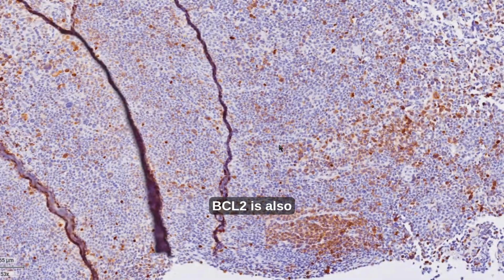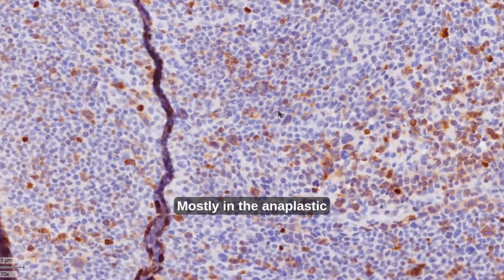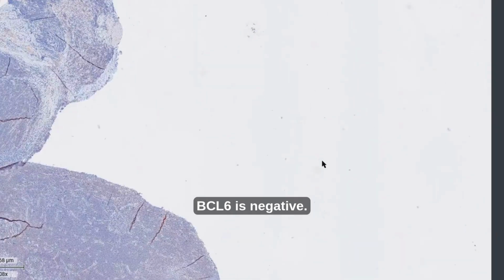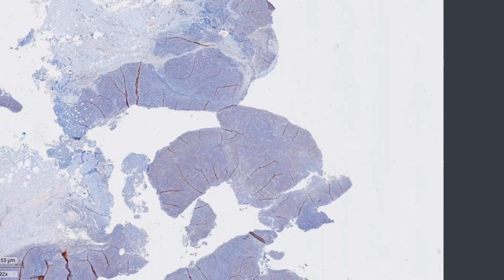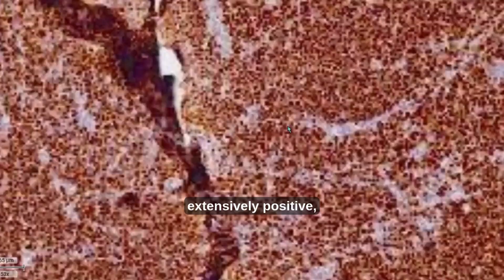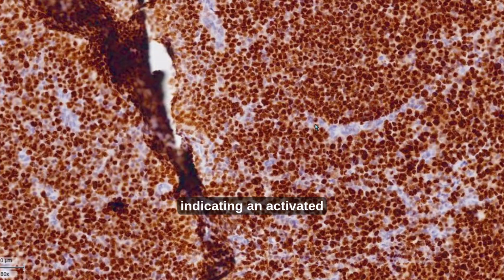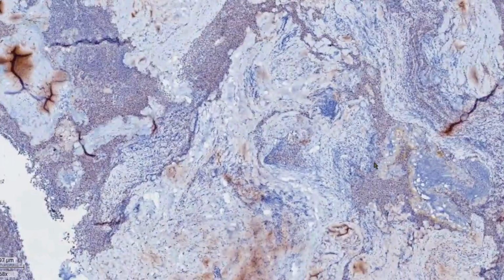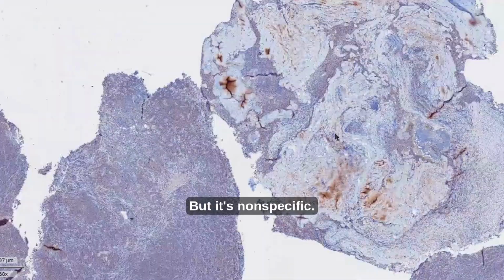BCL2 is also positive, mostly in the anaplastic component, which is aberrant. BCL6 is negative. MUM1 is curiously extensively positive, indicating an activated phenotype, but is non-specific.